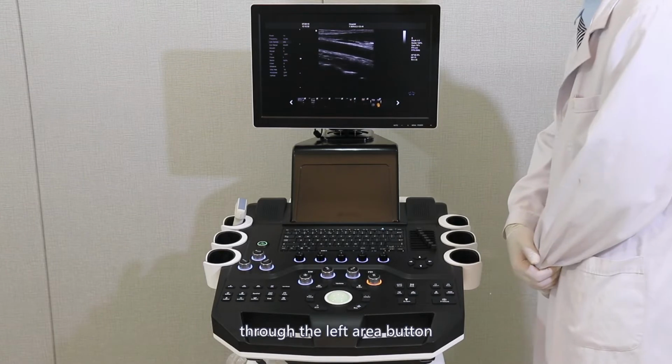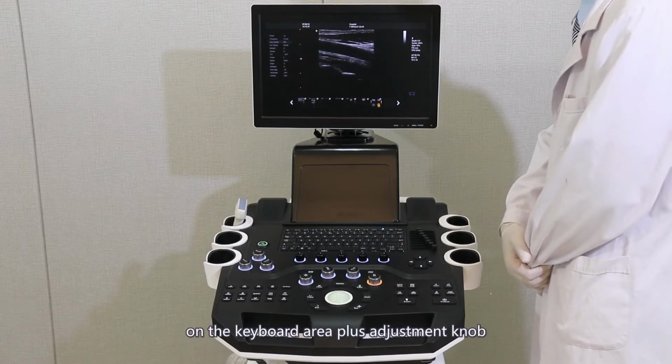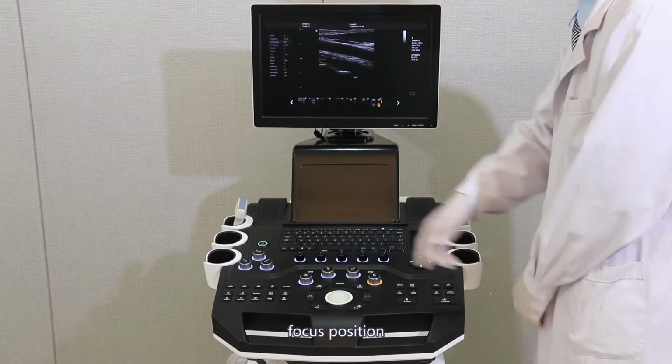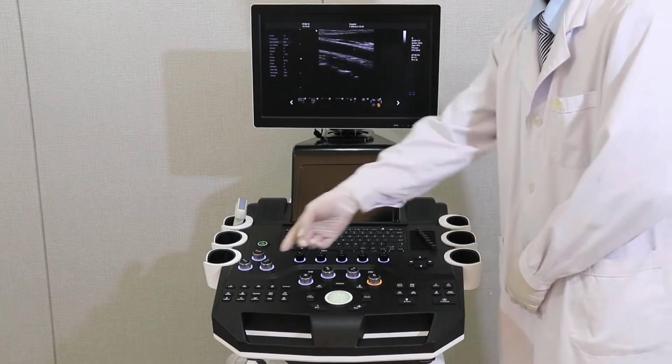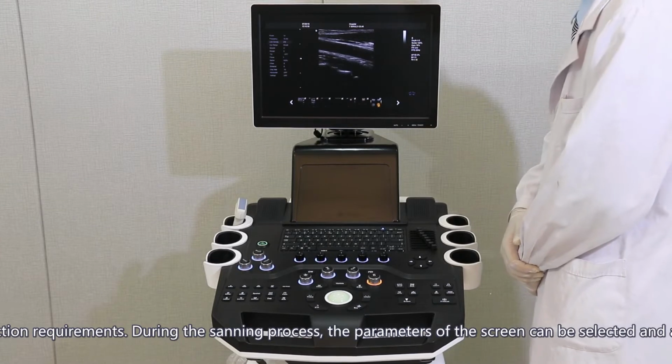Through the left area button on the keyboard area, plus the adjustment knob, change the depth. Focus position to meet the current inspection requirements.